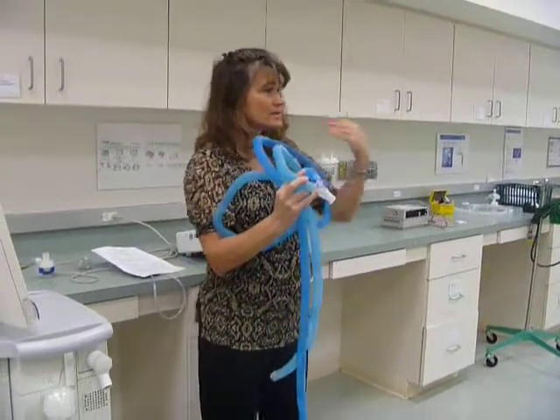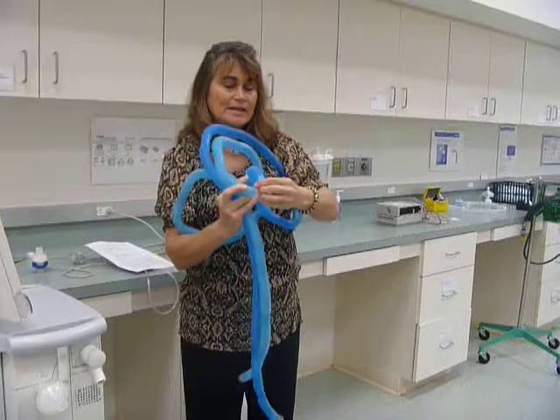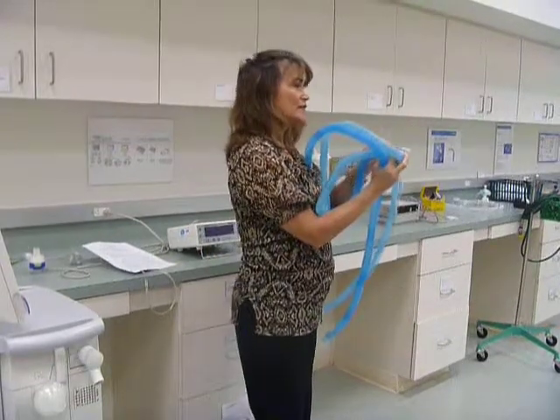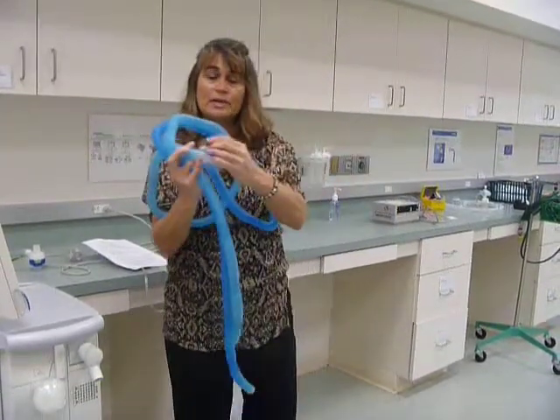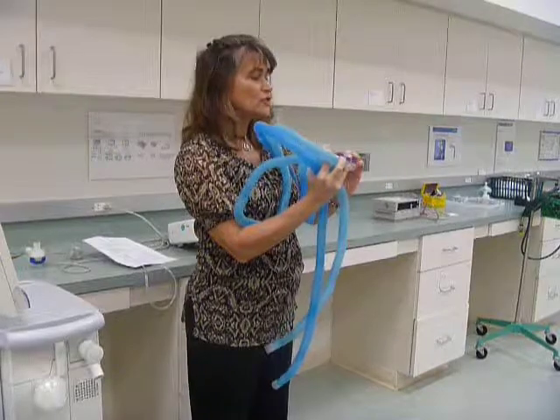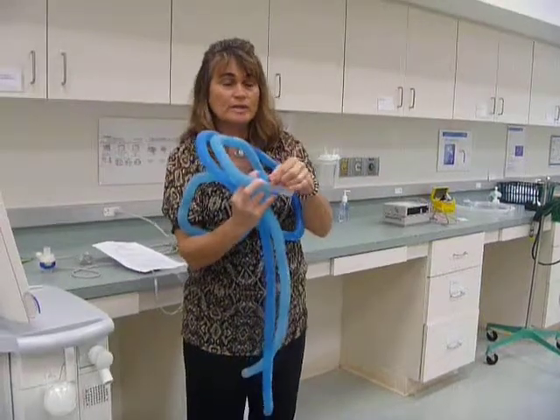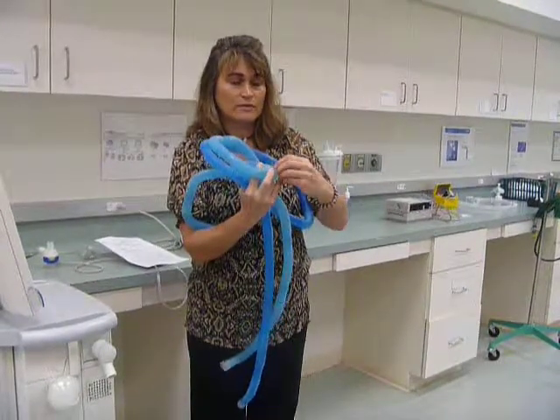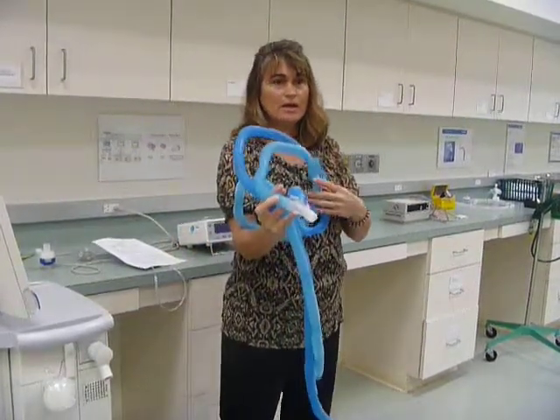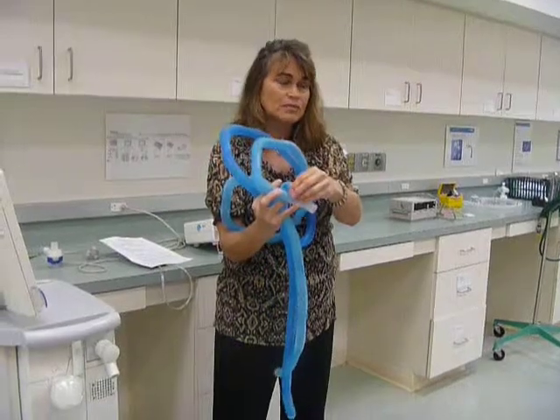Right, so when the patient exhales, again, the exhaled air is going to go through the other tubing, and it's going to be this side. This has a pressure sensing line on it. Can you see the difference? How you could slide tubing onto this one? Where the temperature sensing port, you can tell you have to put something into it. All right, this is for sensing pressure at the Y. Most of the new ventilators now do not use this. So if you see it on the circuit, it just stays capped off. And you attach nothing to it. It just kind of stays there, but you don't use it. What is this called? Pressure sensing port.